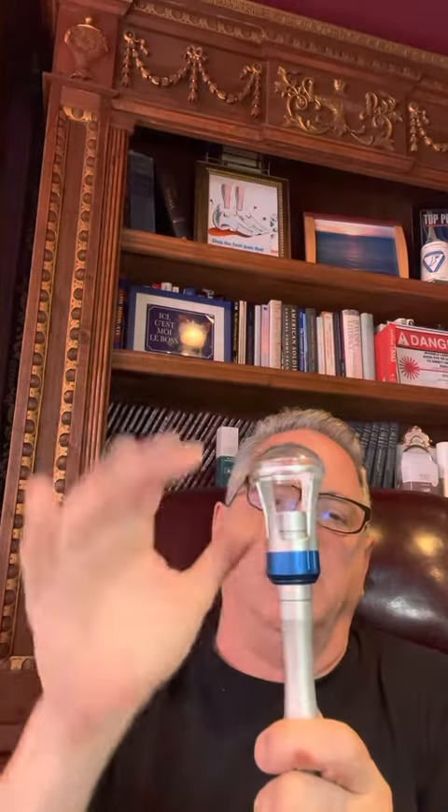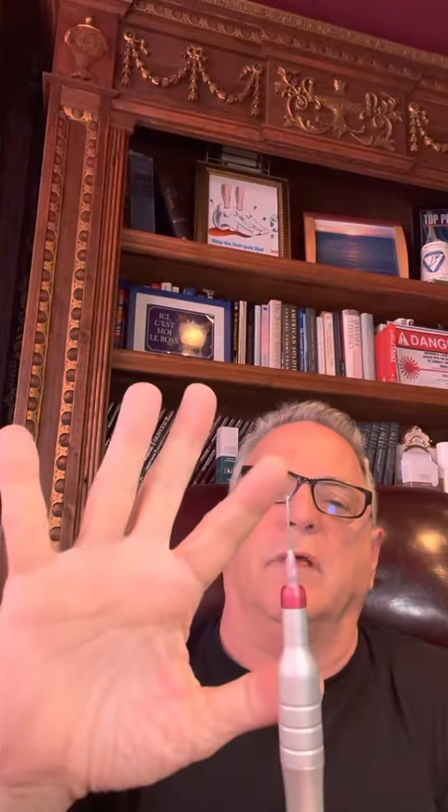And it's very simple. This is the therapy handpiece. You just take it off and you put on the surgical handpiece. This is a fiber optic tip. It's three millimeters in diameter and can be used for surgical ablation and, more importantly, the treatment of mosaics without the need for anesthetic.